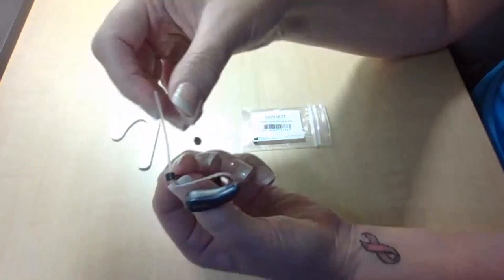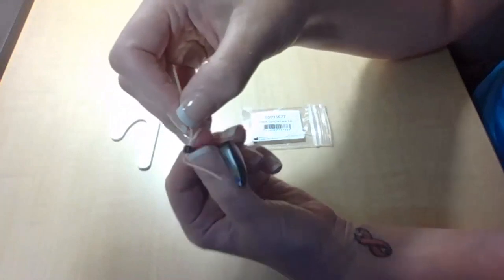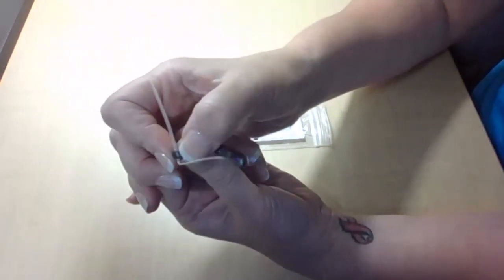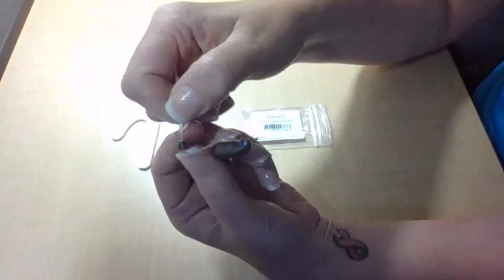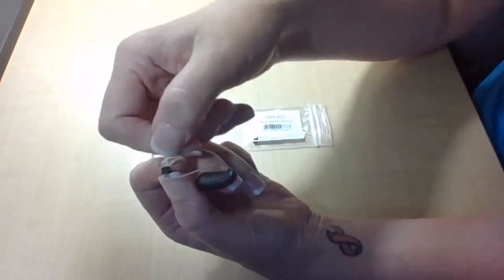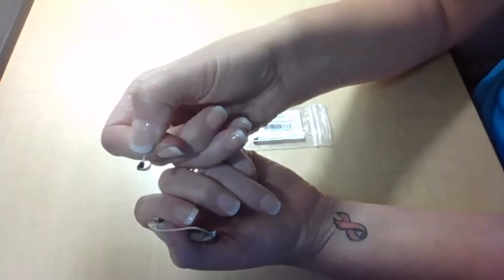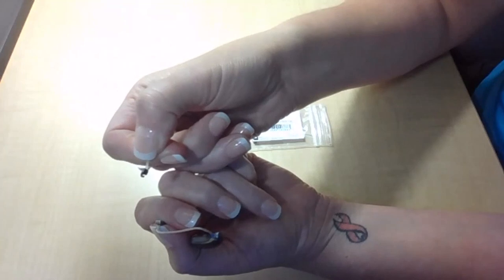Now, if you decide you don't want that ConchaLock after all, instead of wedging it off with your thumbnail, like so, grab onto your receiver, grab the tail, and give it a firm pull. And that's going to snap that ConchaLock right off.